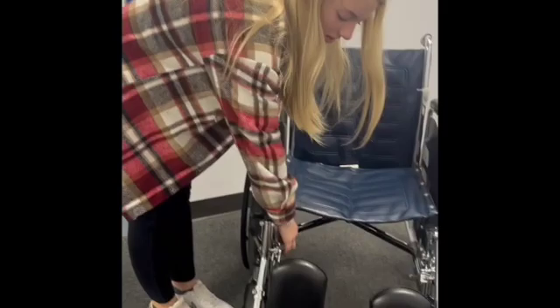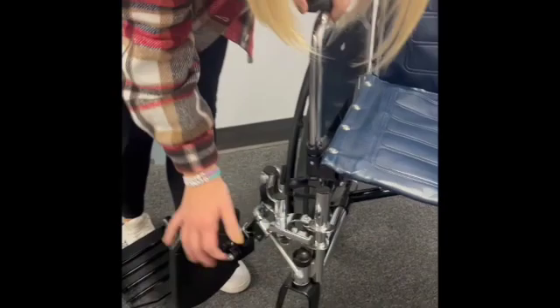Wheelchair video, ready, go — starring me and Kaelin. That's me. Okay, so to move the legs in and out, you grab down here at the silver part and you open it, and then to close it, put it back.